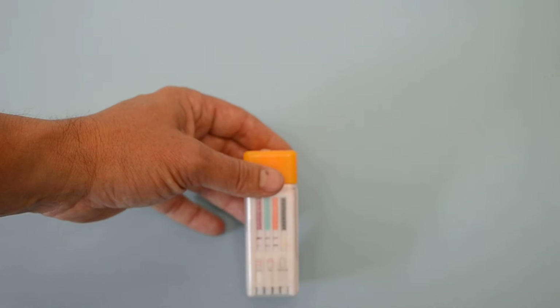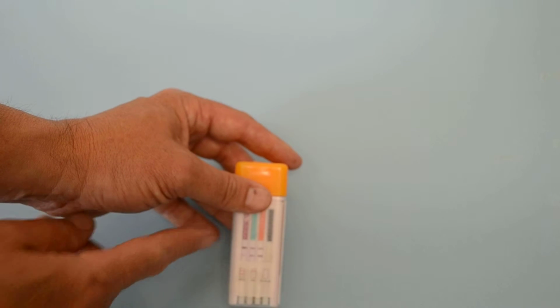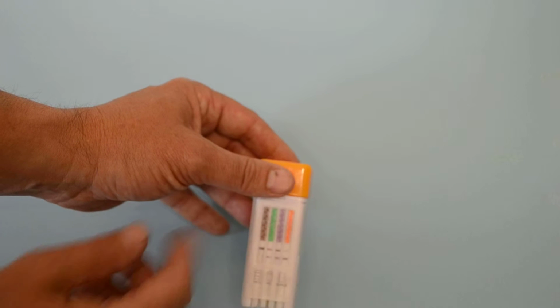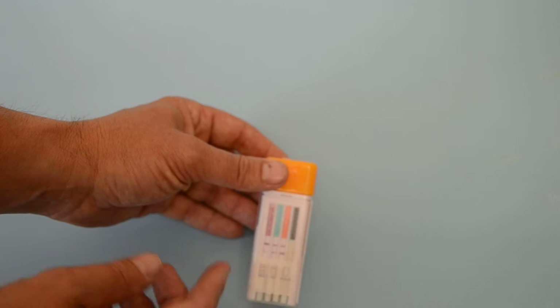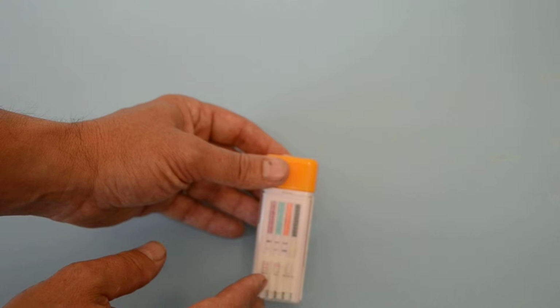The other membranes you interpret by the presence or absence of a test line in the presence of a control line. So on all these you must have the control line showing at the top of the test membrane, and we've got lovely clear control lines showing on all 12 membranes. And then for a positive or negative result, you're interpreting it by the presence or absence of a test line. So 2 lines are a negative test.